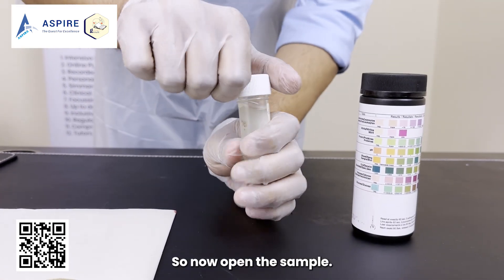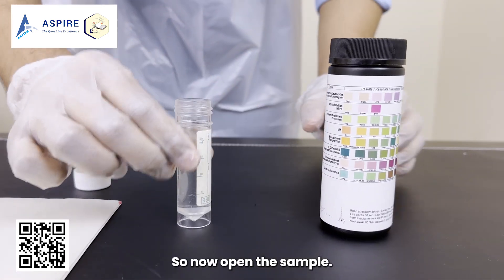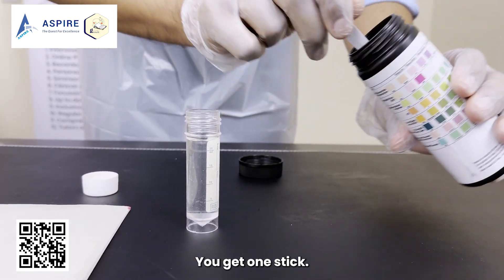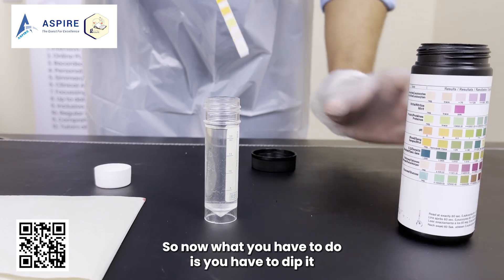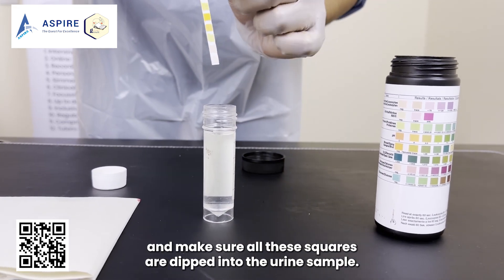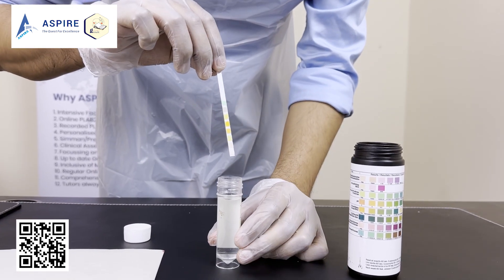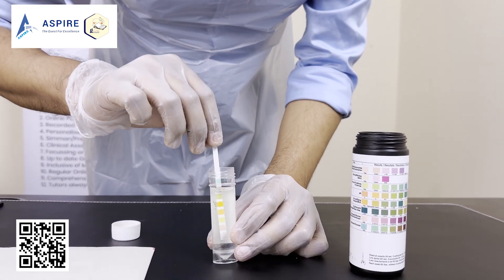Now let's do the urine dipstick. Open the sample, get one stick, and dip it into the urine — make sure all the squares are dipped into the urine sample. Do it for just a few seconds, then take it out and place it flat on this paper like this.